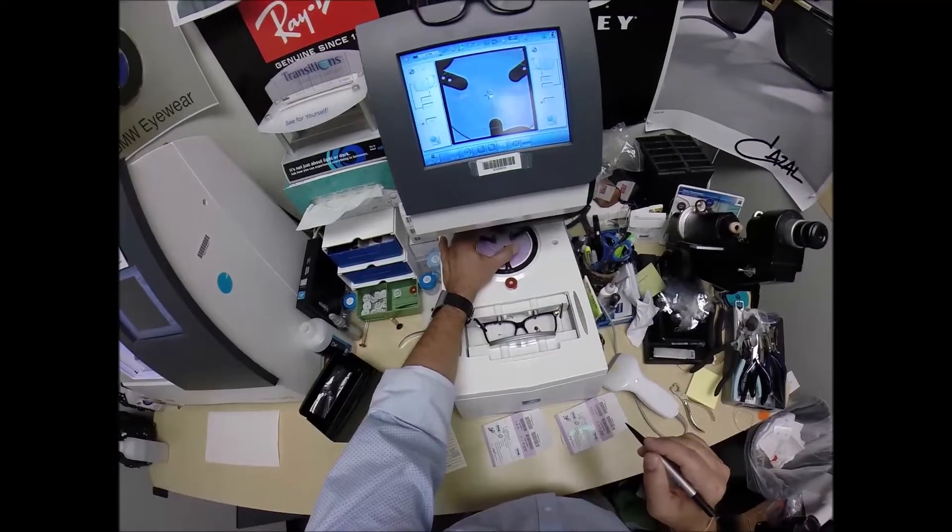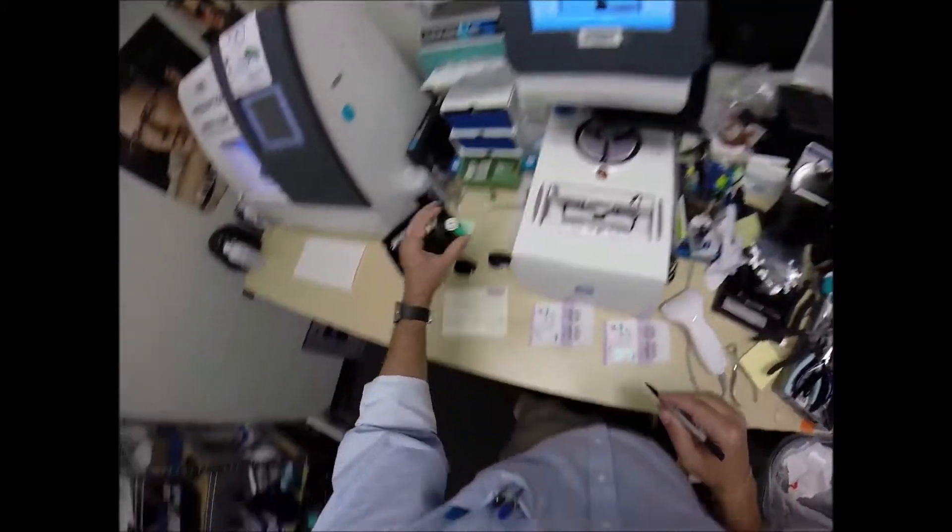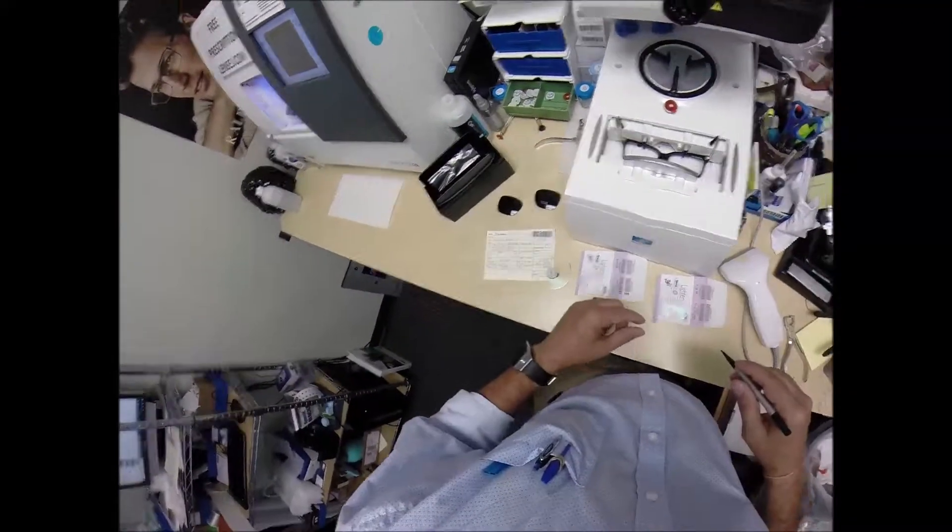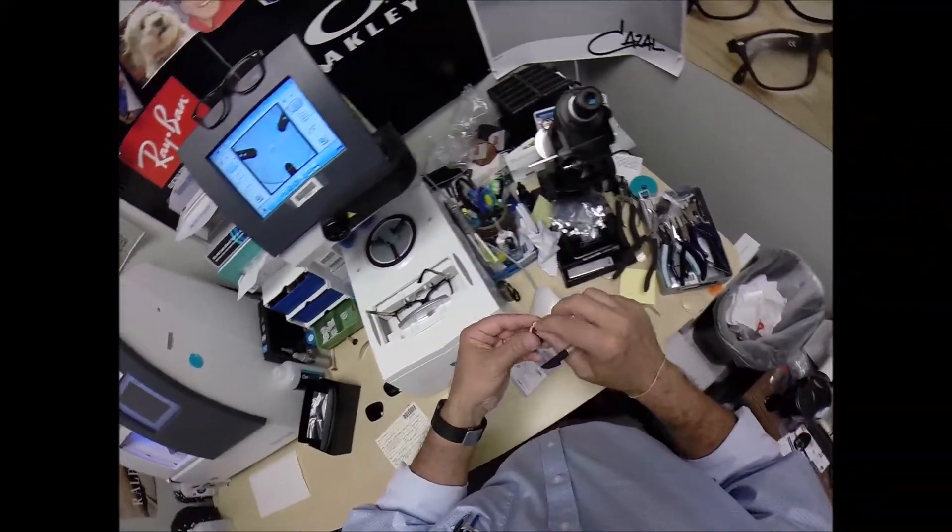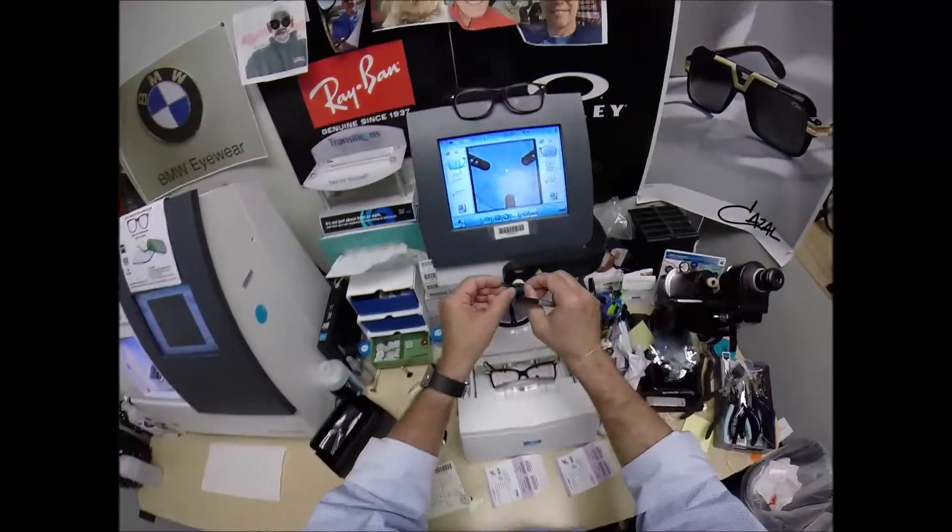The arm is going to come down. Place the block onto the left lens. Do the same thing now for... Well, I'm sorry. That was the right. We're going to do the same thing now for the left lens. Pull the paper away. Line up the magnet.